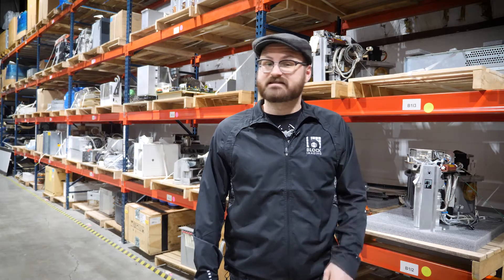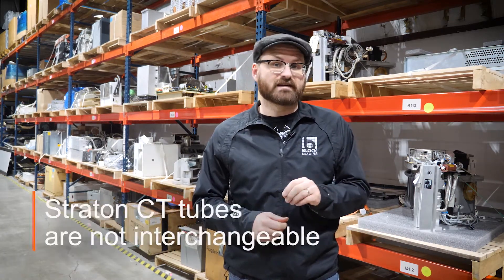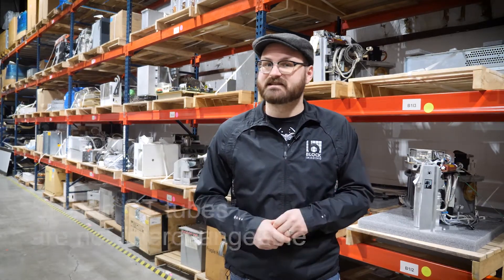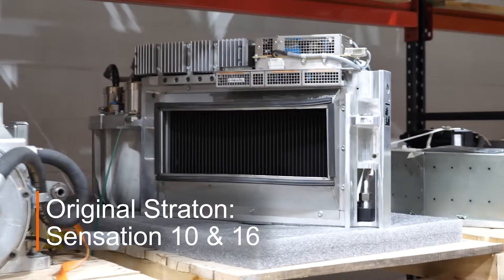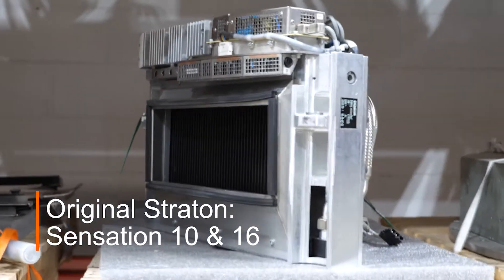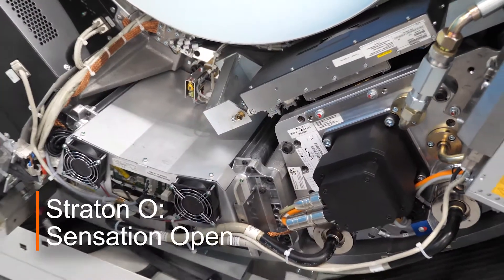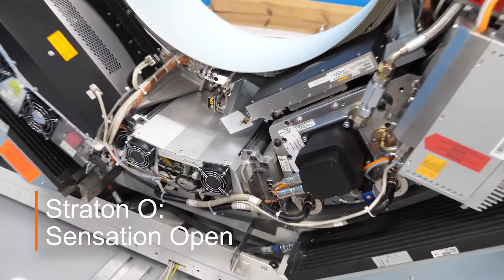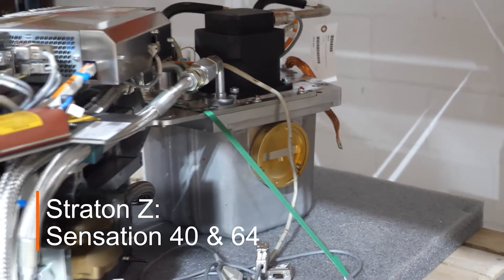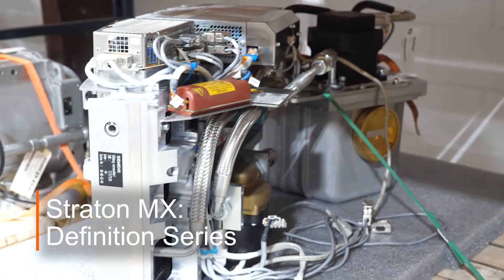The first reason Siemens Stratton CT tubes can cause some confusion is that there are several varieties, but they're not all interchangeable between every Siemens CT system. The original Stratton tube is designed for use with the Sensation 10 and Sensation 16. The Stratton O is for use with the Sensation Open. The Stratton Z is for the Sensation 40 and the Sensation 64, and the Stratton MX is used with Siemens Definition CTs.